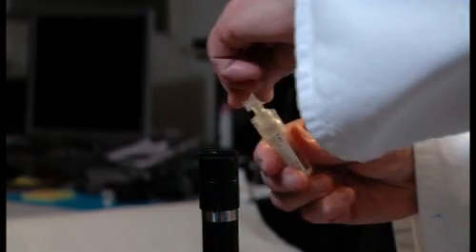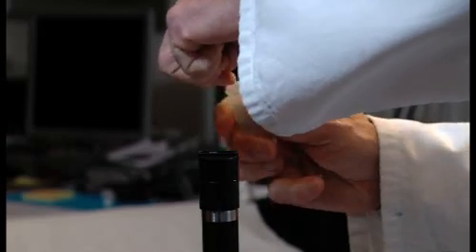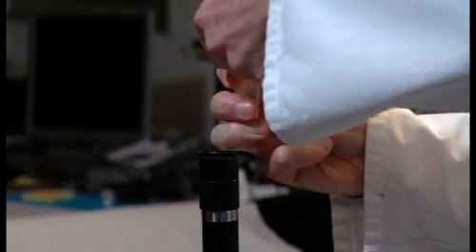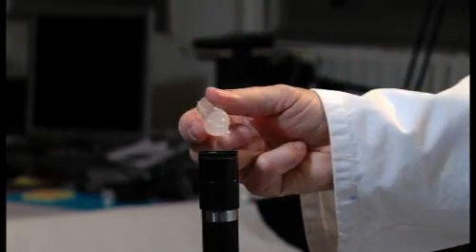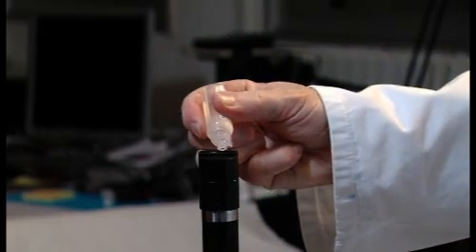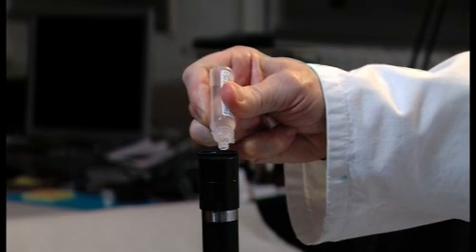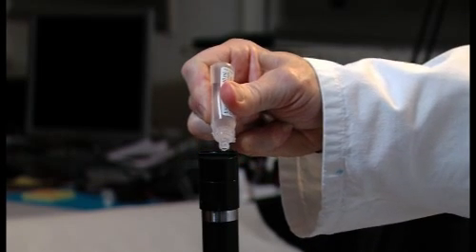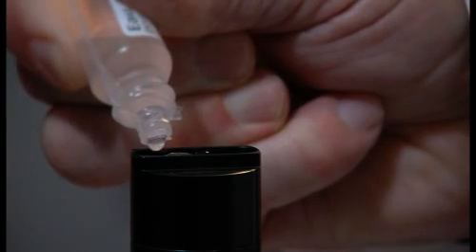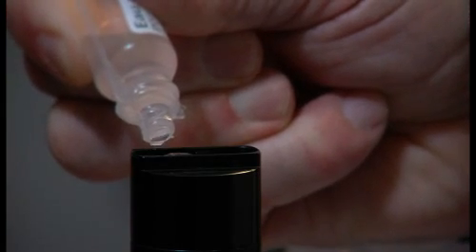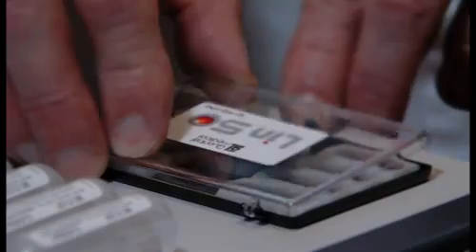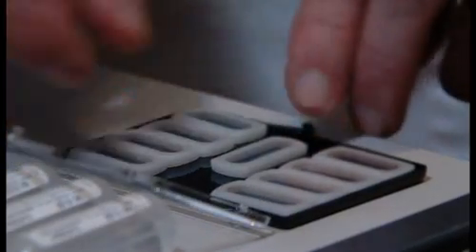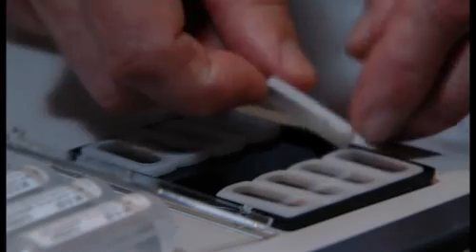The linear 50 megahertz probe has been designed to provide accurate views of the anterior chamber. It is essential that the probe is filled with demineralized water before use. The water must form a meniscus at the top of the probe. A window is fitted on the probe aperture.